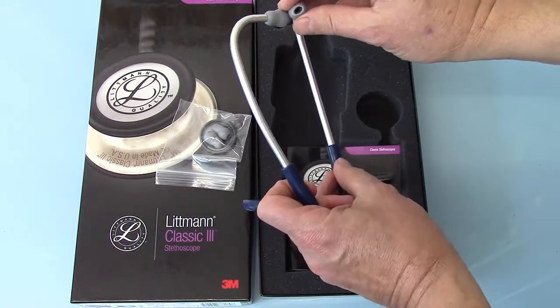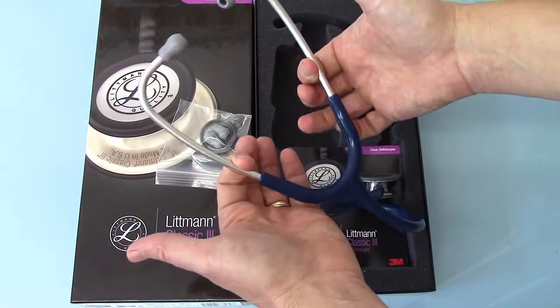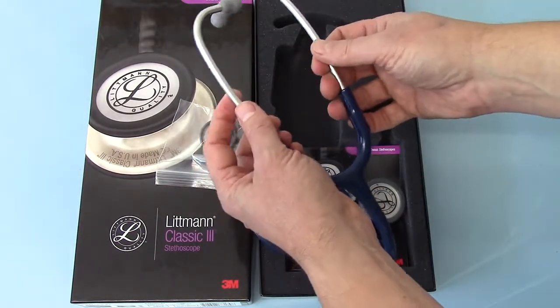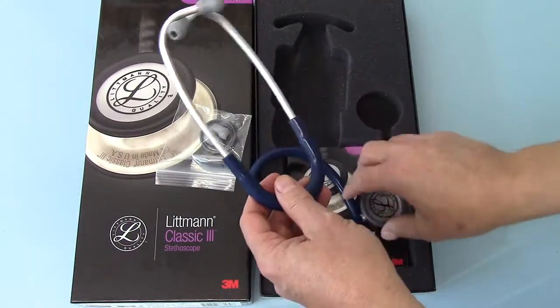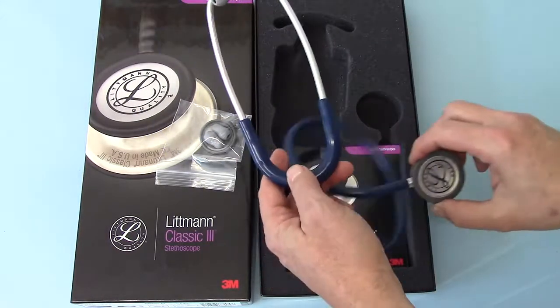The headset is a full sized headset. Compared to the old one it's now configured with soft ear tips, which makes it more comfortable to use long term. The springing on the headset is quite tight. Some people have commented that if you're wearing them for a long period of time it is a little tight — it does loosen with time, but the spring is not adjustable in any way.